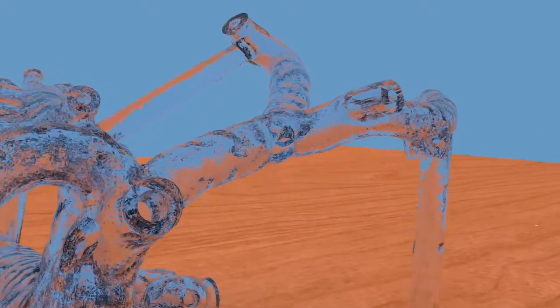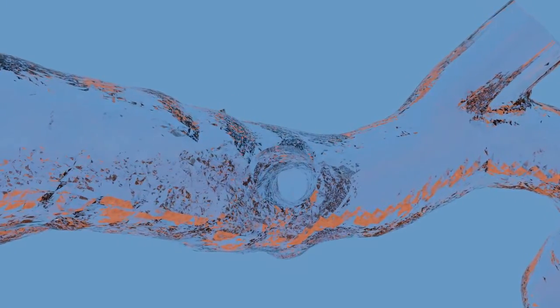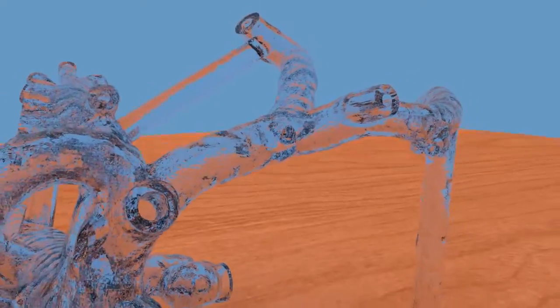To facilitate easy retrieval of coils and other devices deployed within the model, access ports are strategically positioned throughout the model to make retrieval easy.